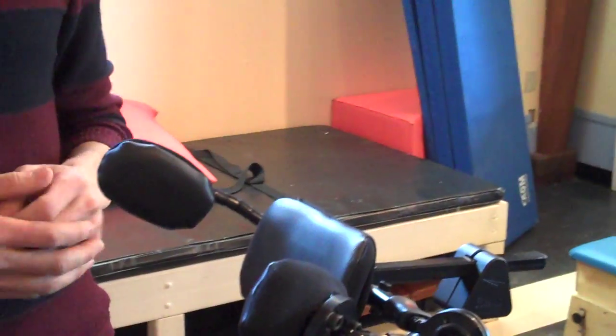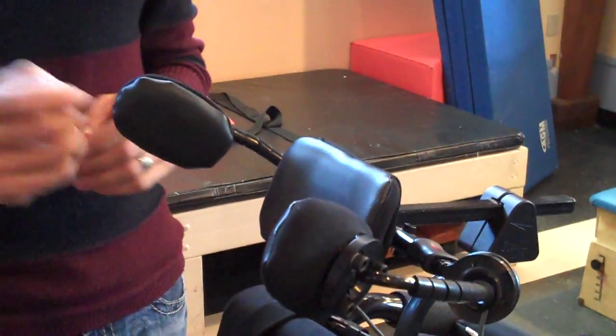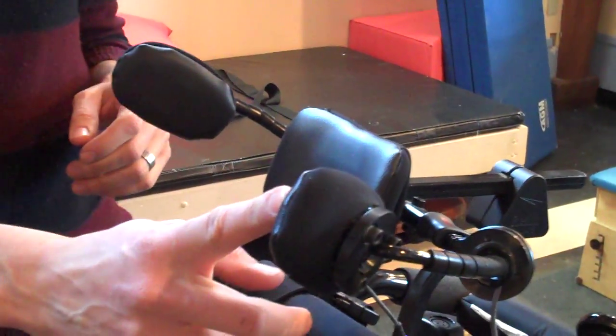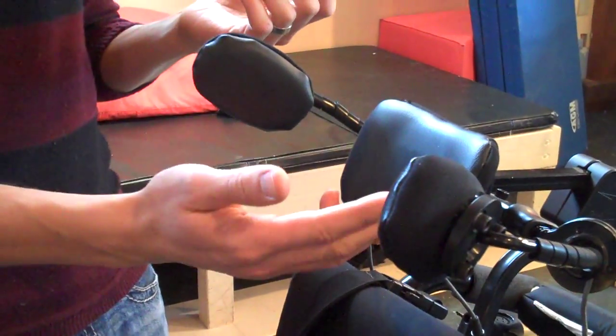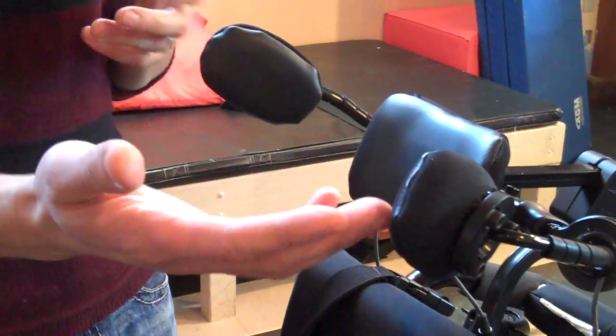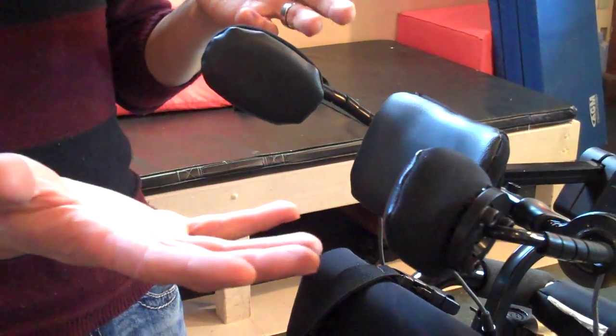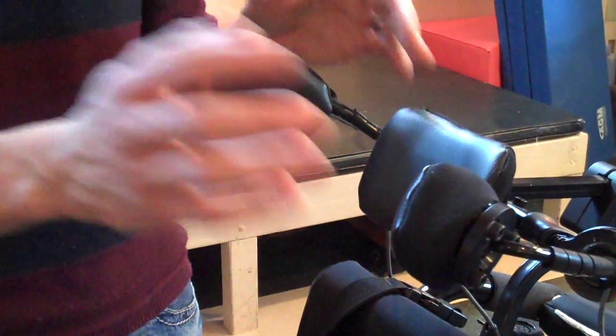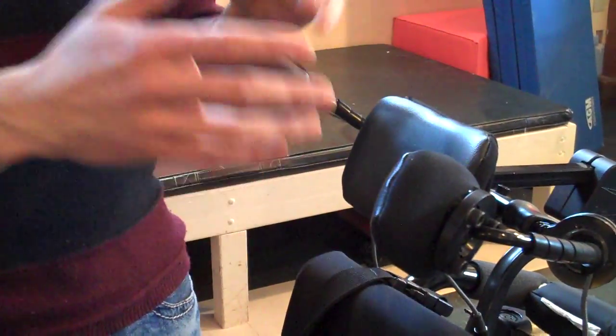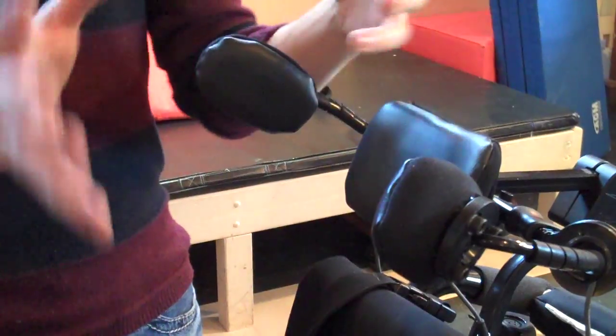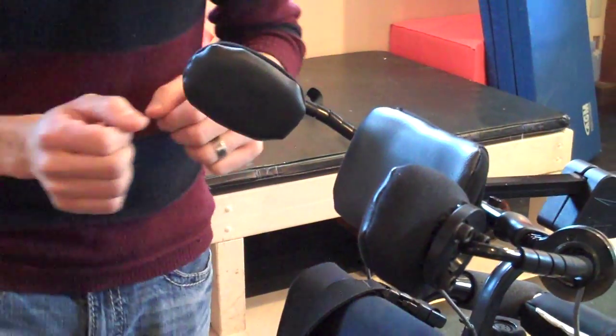So you have two switches here or three? There are three: left turning, right turning, and forward. When I say left and right, that's the position I have them in, but that can be switched. Each switch can be programmed to do a different drive movement.